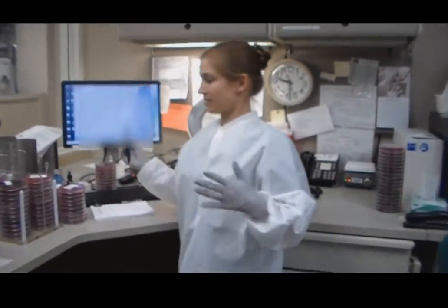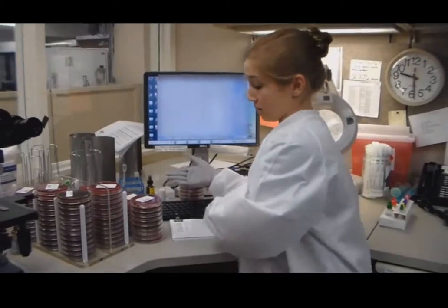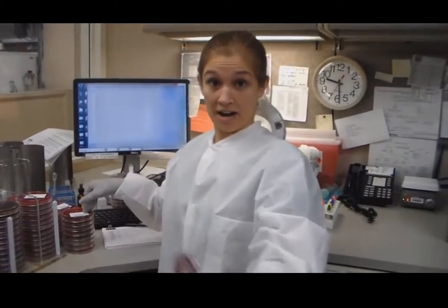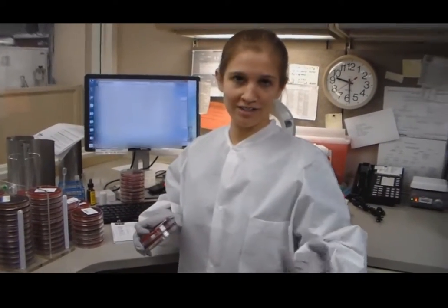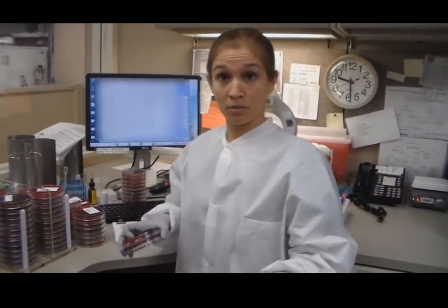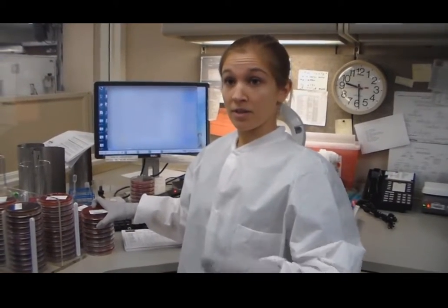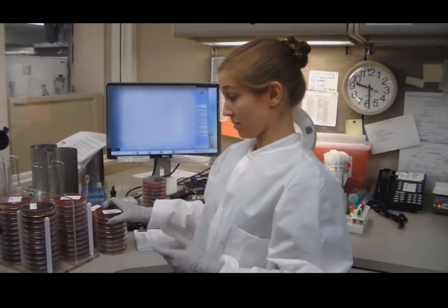So, Brittany, why don't you tell them what you know? Well, a little bit about our day-to-day. I would come in and do our 24-hour cultures that were set up the day prior, and I'll read these. So we'll do anything from urines to throat cultures to wound cultures to sputums, body fluids, spinal fluids, any kind of specimen.